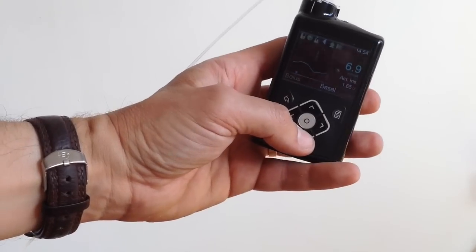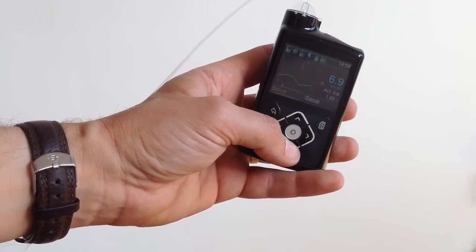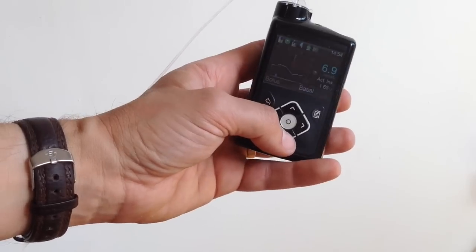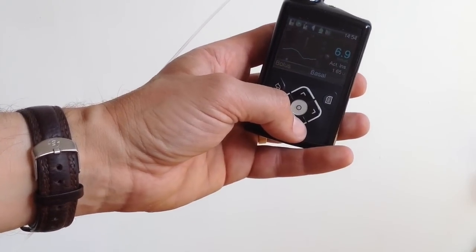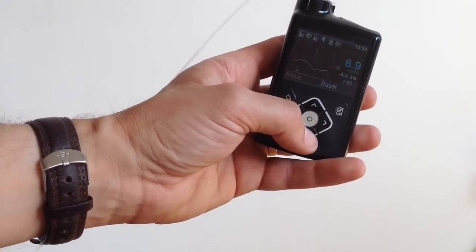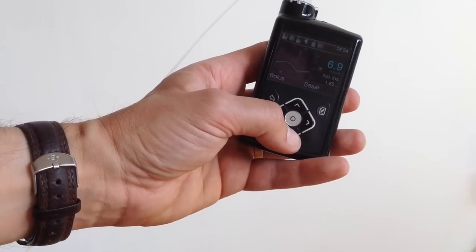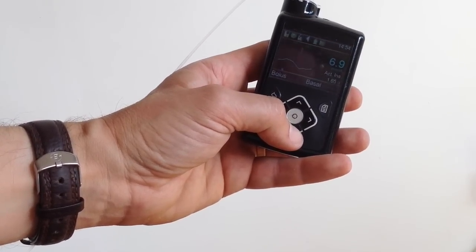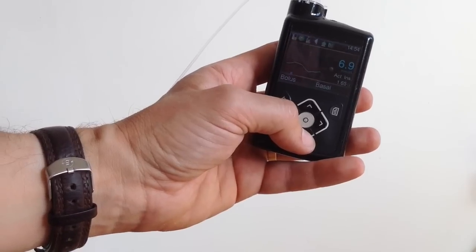So it's showing me battery is halfway full and an amber for the reservoir. But that will do me for the next two days.